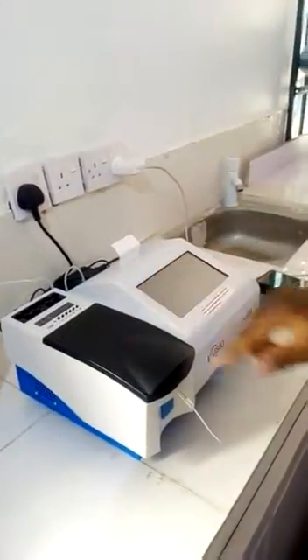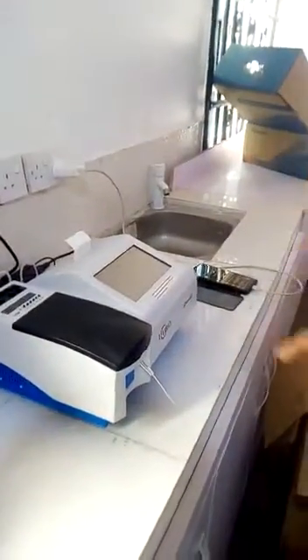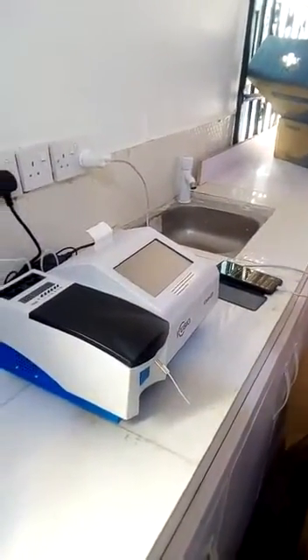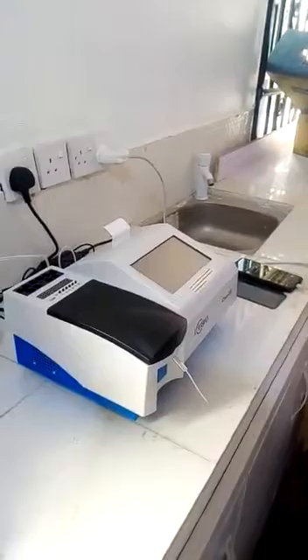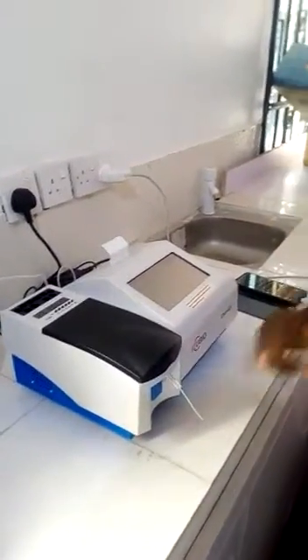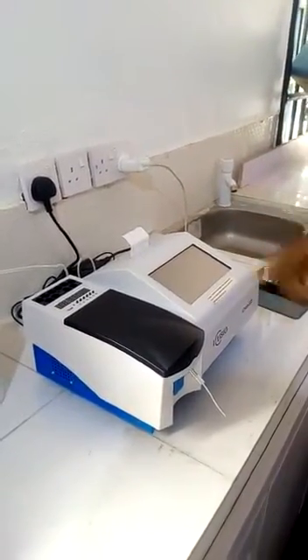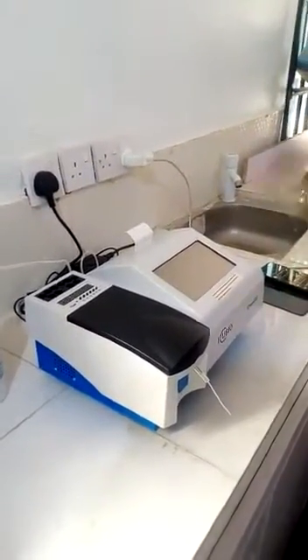I have already shown her the flow cell inside here. The flow cell works on flushing — each time you need to flush. So when you come in the morning, before any work starts, use spirits as alcohol to flush the flow cell twice. Then use clean water to flush it twice also, before you start your normal work.